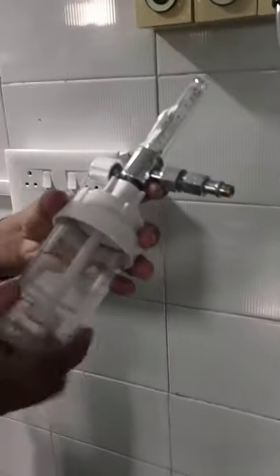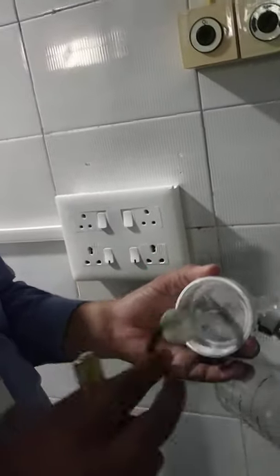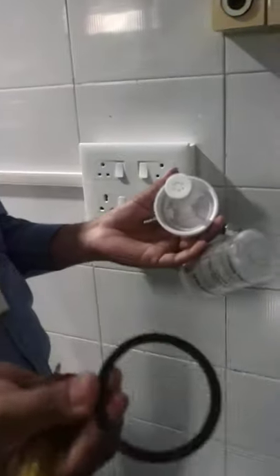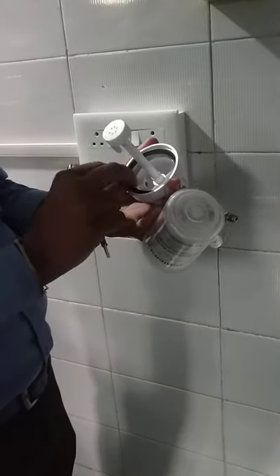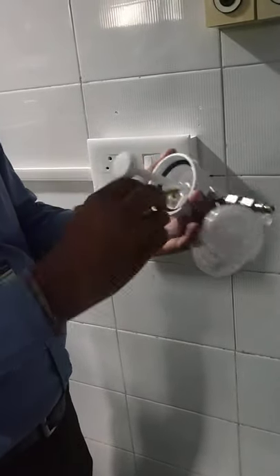One more thing — sometimes there will be leakage. When you are removing this bottle, there is a black washer which prevents leakage from the bottle. If it gets lost, that's why some leakage will occur. Suppose it gets removed — you have to fix it back in place. Rotate it properly and fix it in.